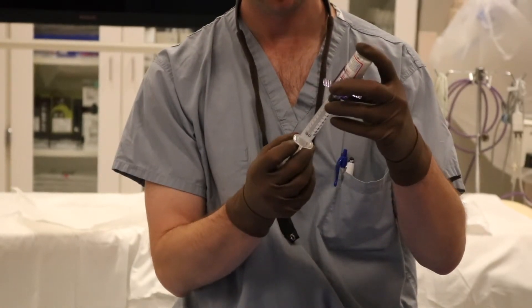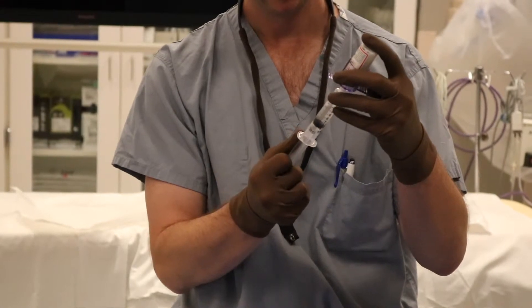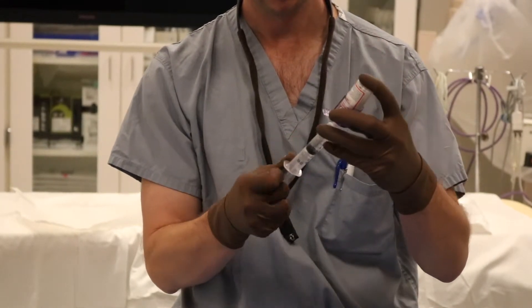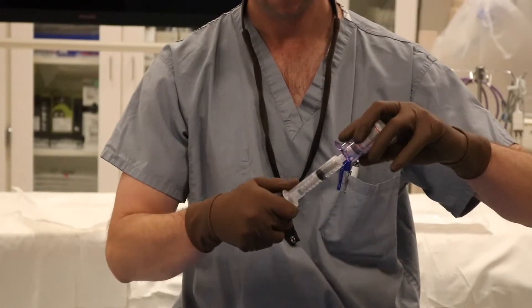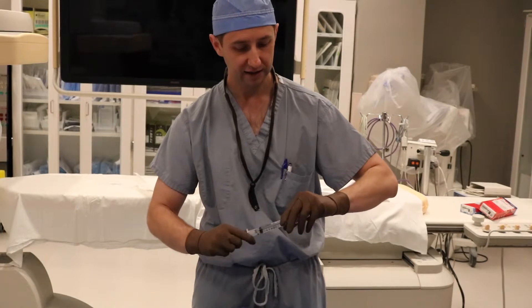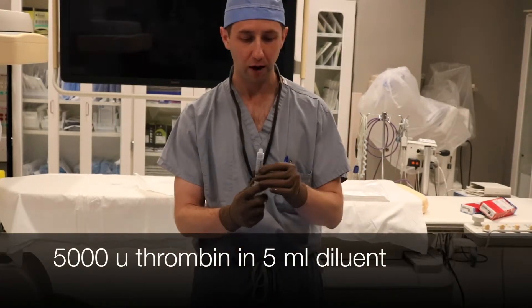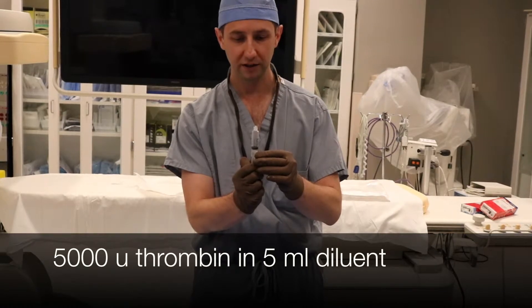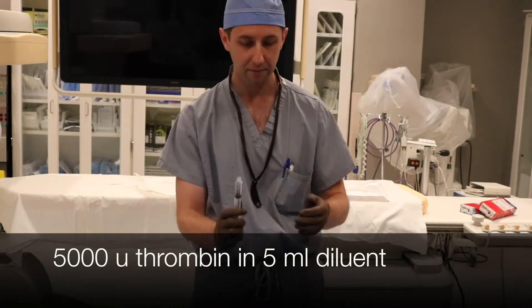So once your thrombin is dissolved, go ahead and draw it back up. Disconnect this. At this point you have 5,000 units of thrombin mixed in with your diluent, and the volume should be about 5 mLs.